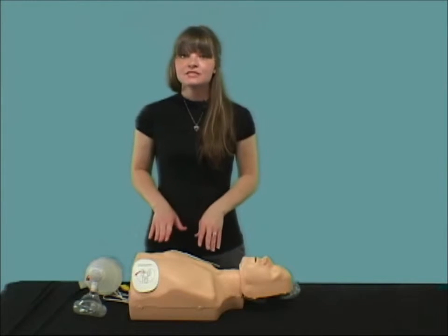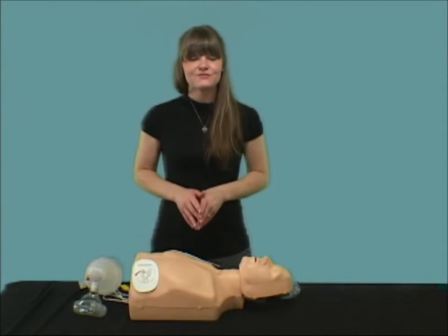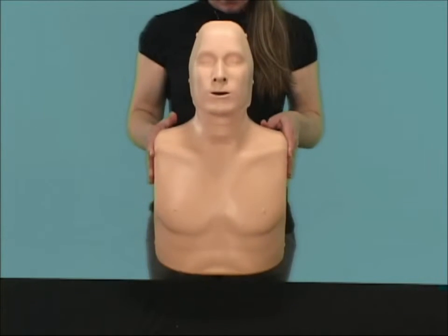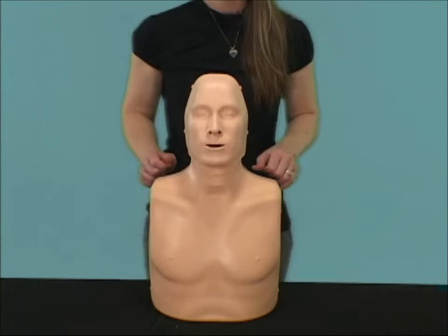Speaking of the skin, the materials used in manufacturing the skin enable us to have a lightweight skin, but one that is very durable. And did I mention that the PractiMan is very light? While the PractiMan is actually two mannequins in one, it still weighs less than half of just one of all the other mannequins in its class, which makes for minimal effort carrying several PractiMans for off-site training.